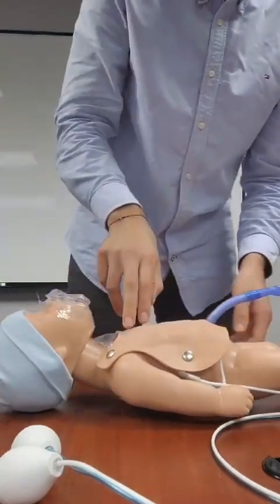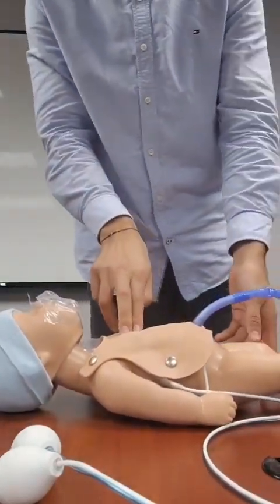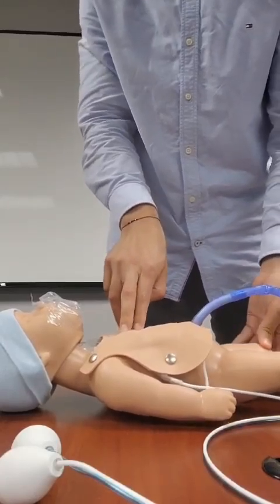I will also demonstrate the chest compressions. So if you're doing this correctly, you'll hear it click, like so.